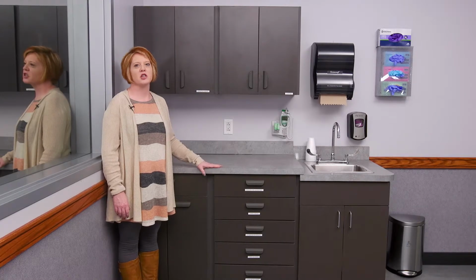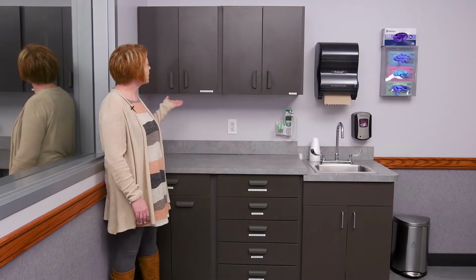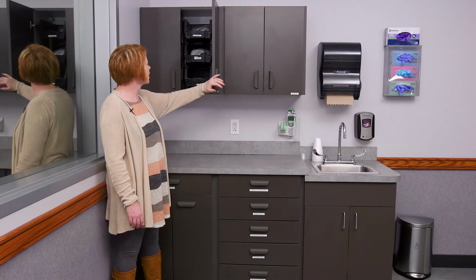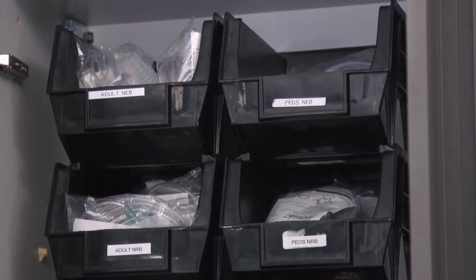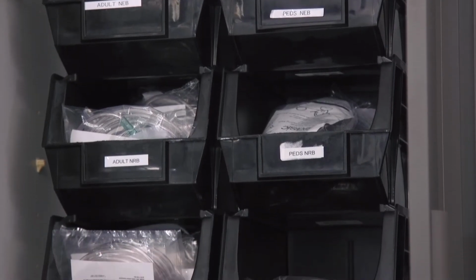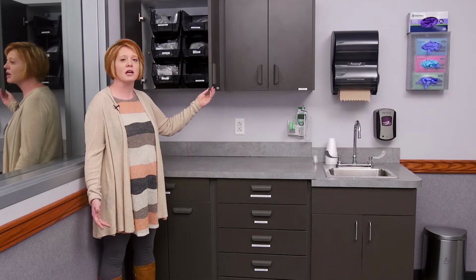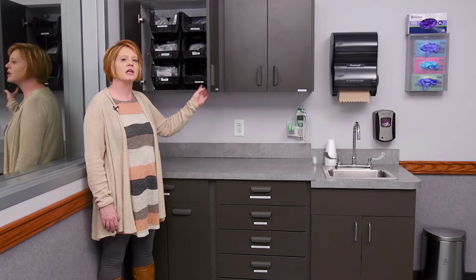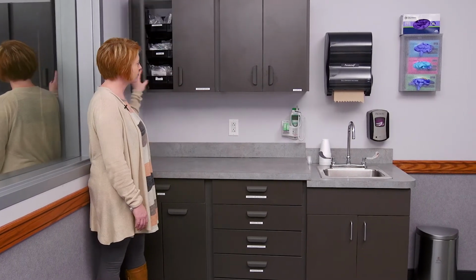Here are the supplies that you will find in your patient room when you get ready to take care of a patient during simulation. An example is respiratory supplies, and it's labeled right there. When you open up the cabinet, there are respiratory supplies in the cabinet. They're labeled with what they are, such as a non-rebreather, a nasal cannula, and a nebulizer. All the supplies are recycled, but we do want you to open them and use them on your patient as needed. We try to keep them as close to realistic as we can when we are repackaging.